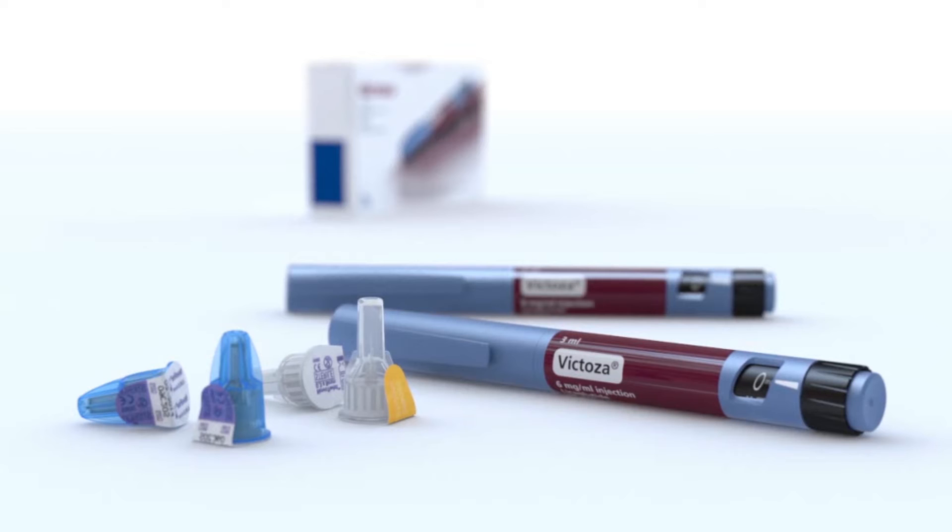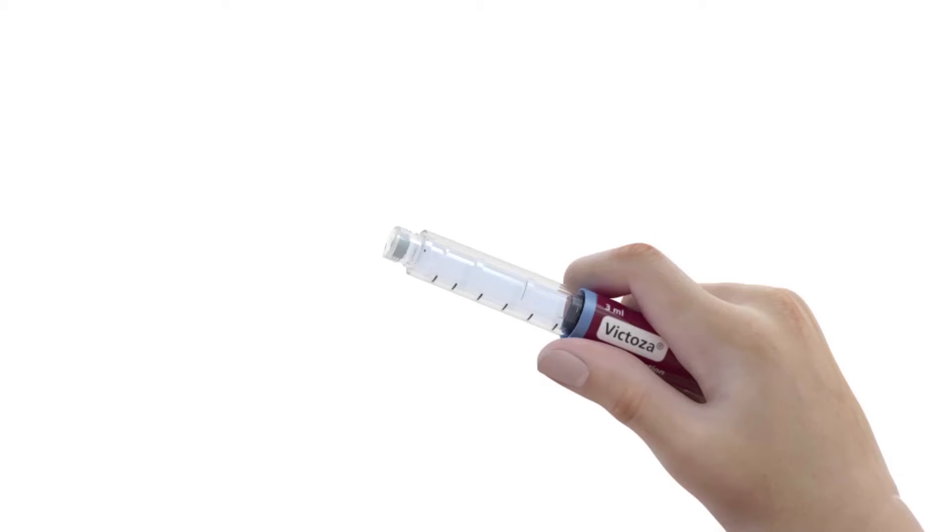Welcome to the quick guide for Victoza pen. Start with checking the pen label to be sure that it is your Victoza pen.